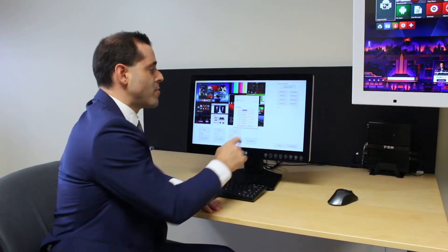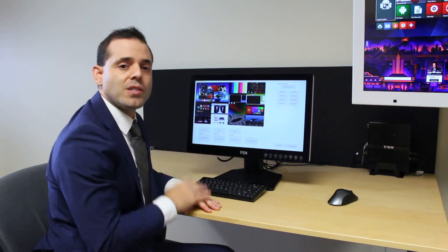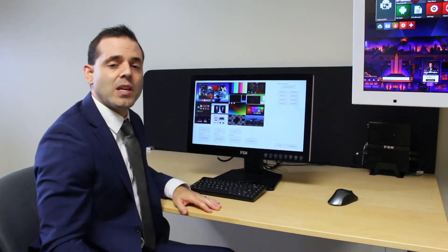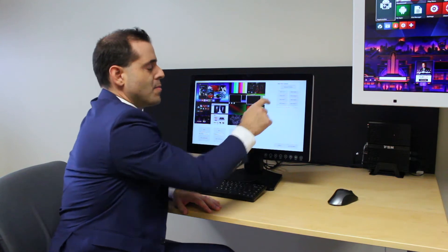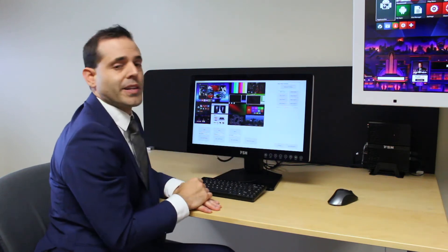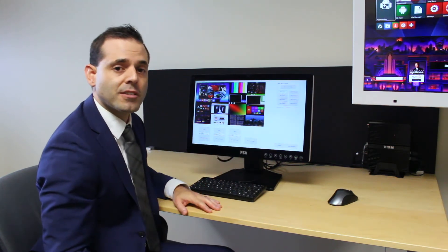Now you have a preset name for the user so they can clearly see what button to hit to get the preset for that doctor or that procedure.